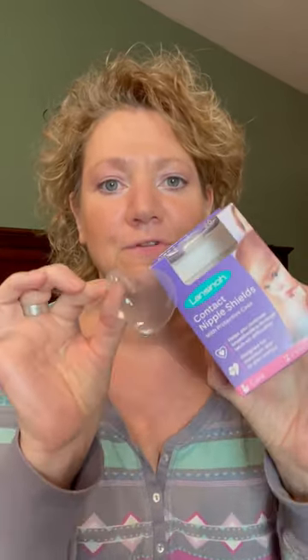If you're a new breastfeeding mommy and you're having trouble getting baby to latch at the breast, a useful tool can be a nipple shield. A nipple shield should be for short-term use and used under the supervision of a lactation counselor, so that the lactation counselor can work with you to figure out what the problem is — why are you needing a nipple shield?